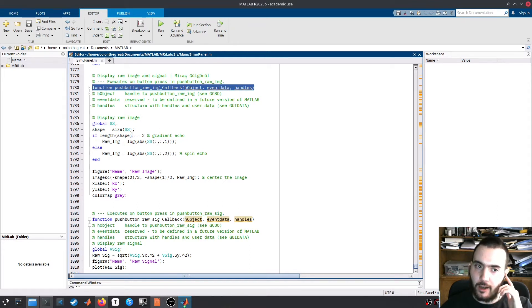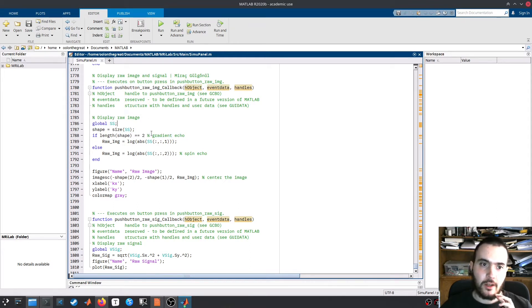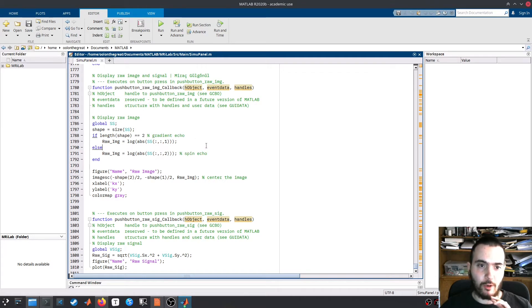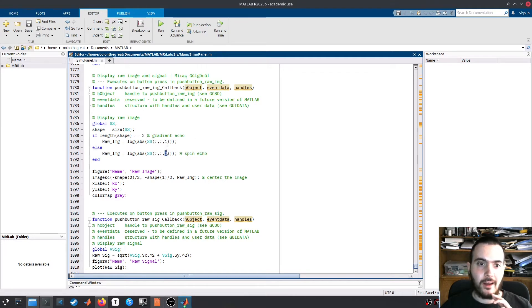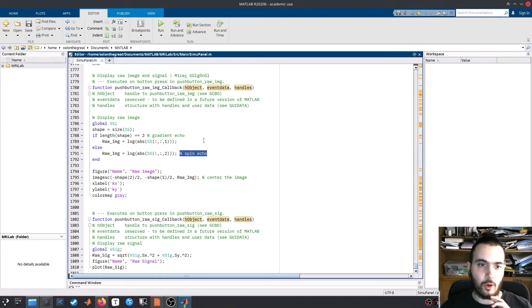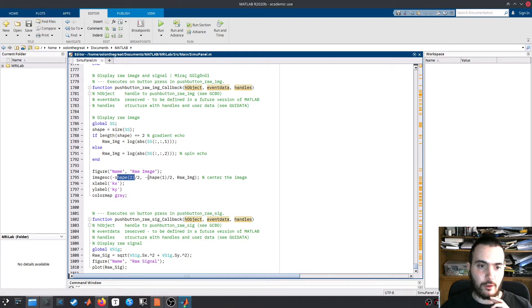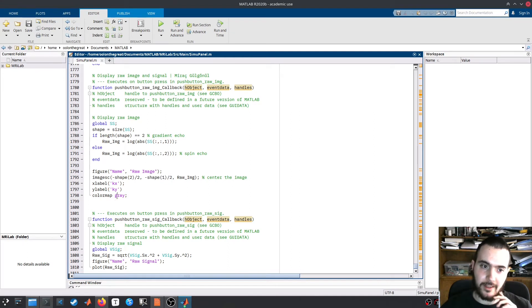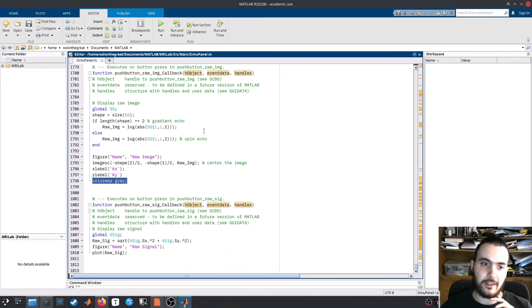I also have an if statement here because, by the way the software works, we have one single image in gradient echo. But when we do a spin echo, we get two images and only the second one actually represents the object. So I added an if statement to check and select the second image if it is a spin echo. Then we display the raw image by first centering the image and then finally showing it as an image in black and white.